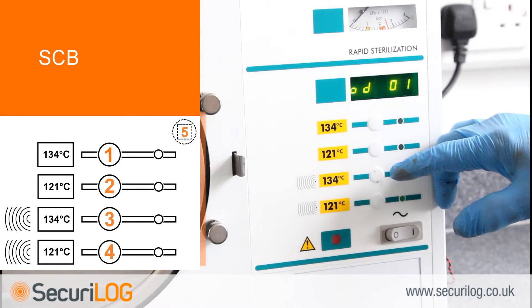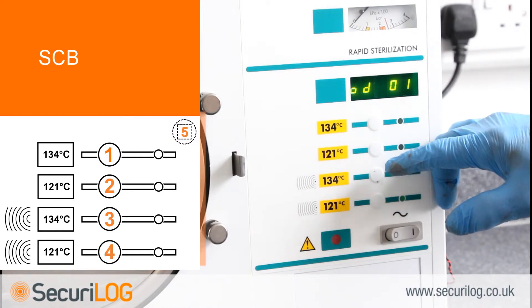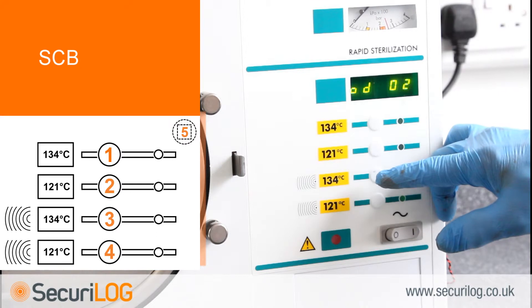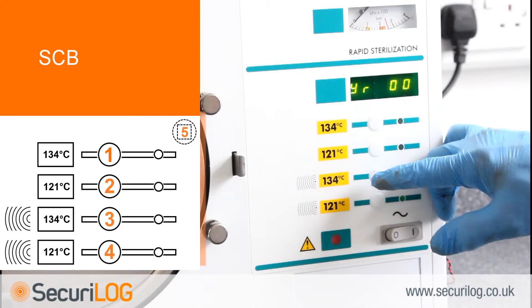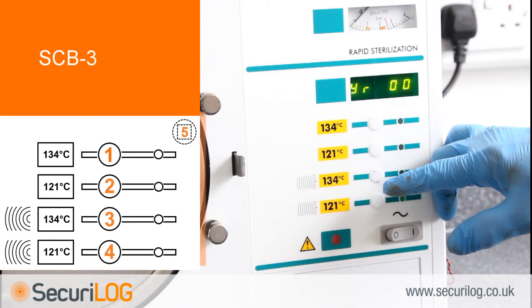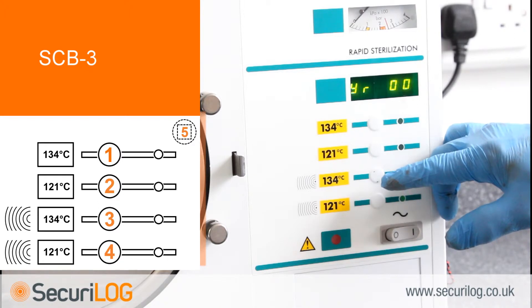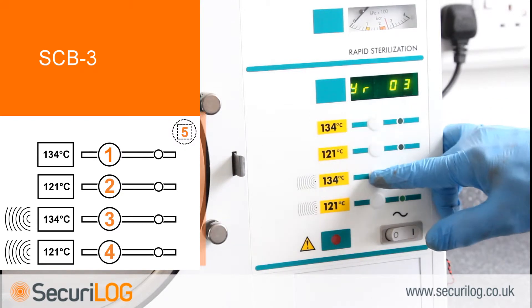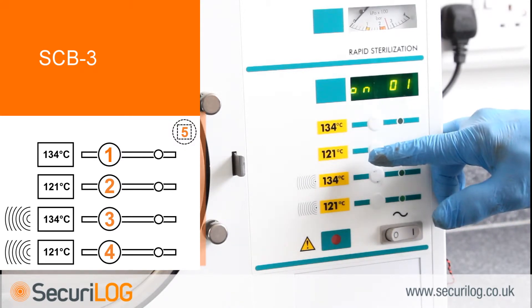With the display reading OD01, press button 1 to begin selecting the required number. Button 1 will increase the number; button 2 will decrease the number. When the number displayed corresponds to the last letter of the modification state, press button 3 to select. The display will now read 'YR00'. The next part to set is the year of manufacture, made up of the two last digits — so 2001 is 01. Press button 1 to select, button 2 to decrease; when the number corresponds with the year of manufacture, press button 3 to select.